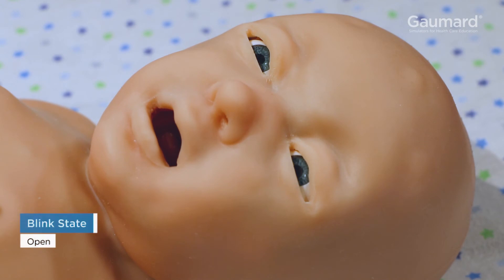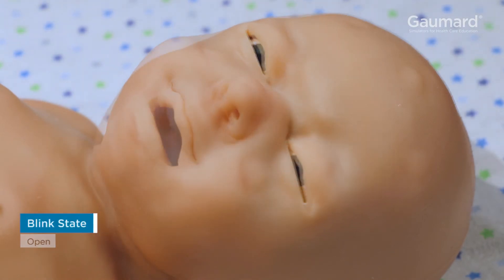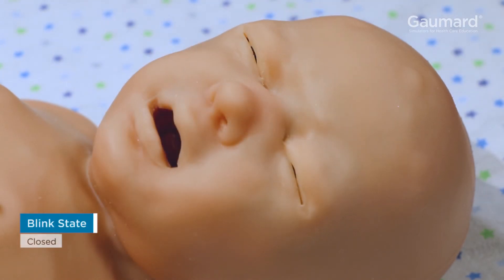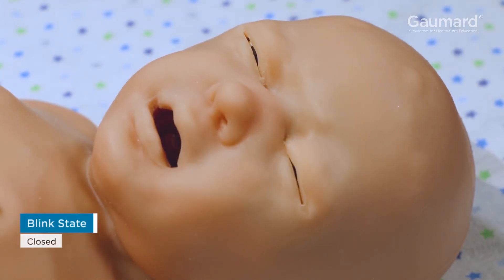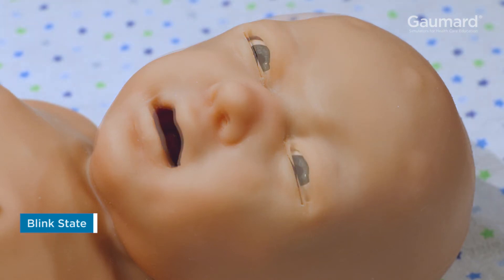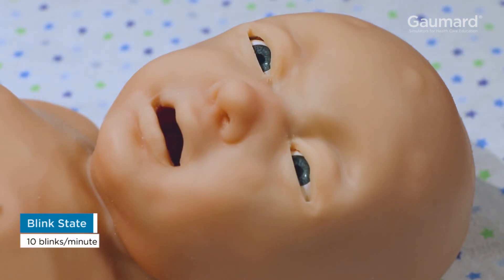Supertory's eyes can open, close, and blink a specified number of times per minute.